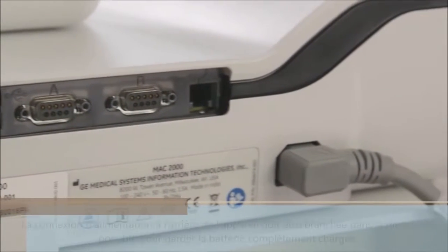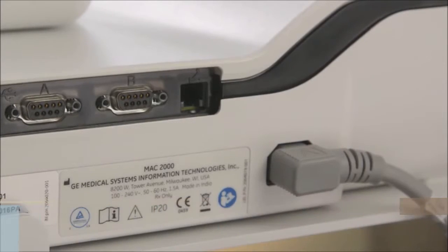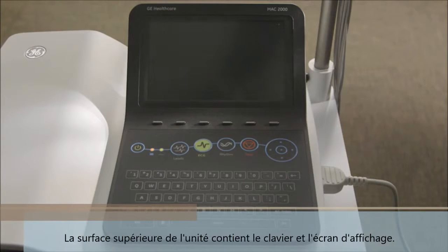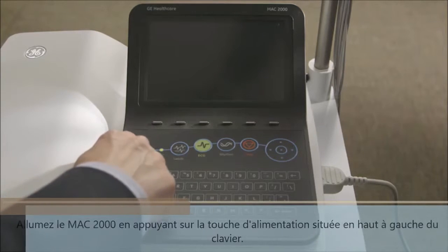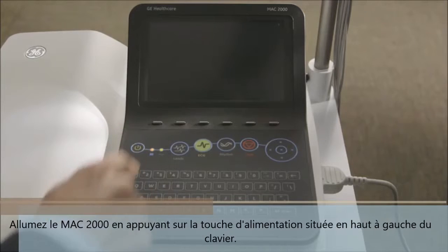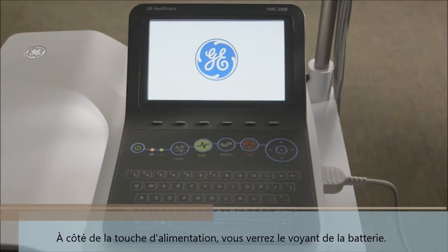The power connection at the back of the unit should be plugged in whenever possible to keep the unit's battery fully charged. The top surface of the unit contains the keyboard and display screen. Turn the MAC 2000 on by pressing the power key on the upper left side of the keyboard. Next to the power key, you will see the battery LED.